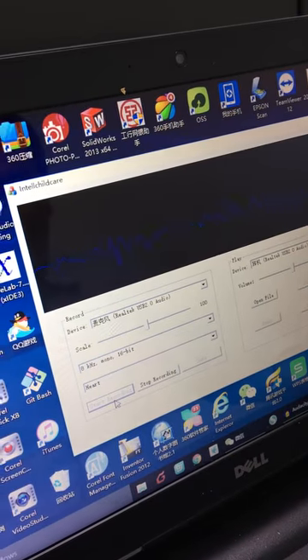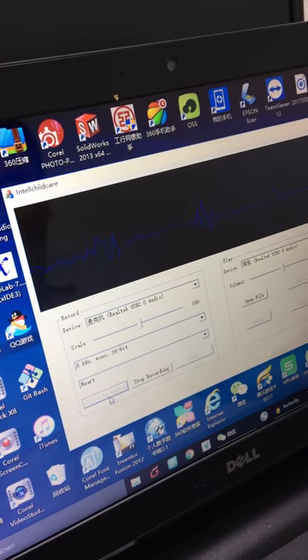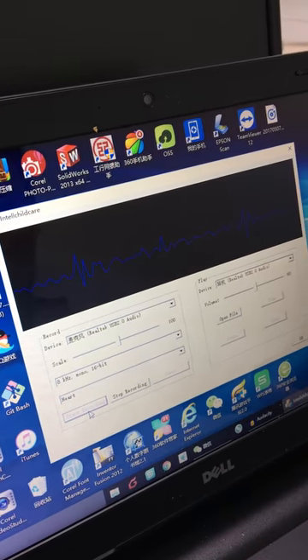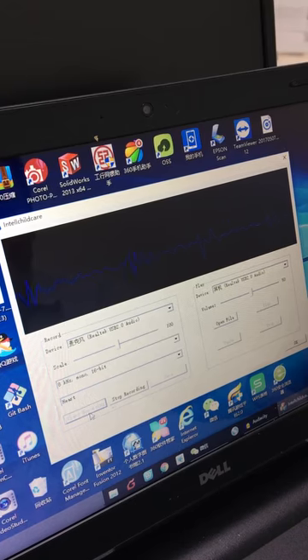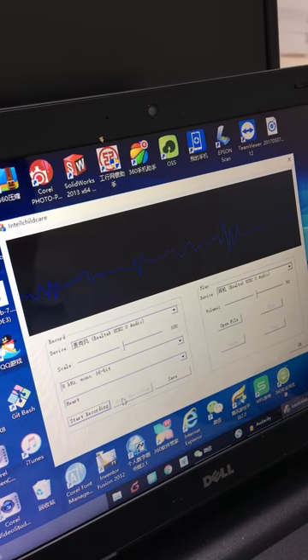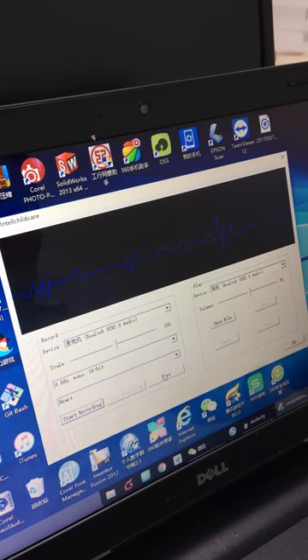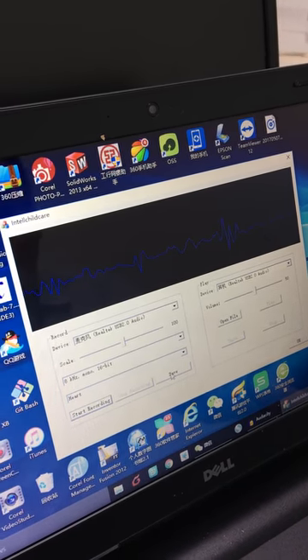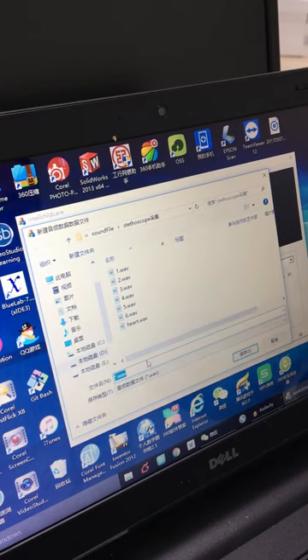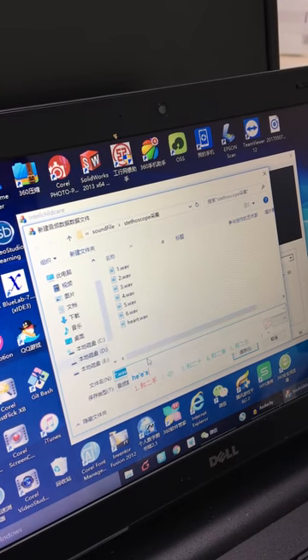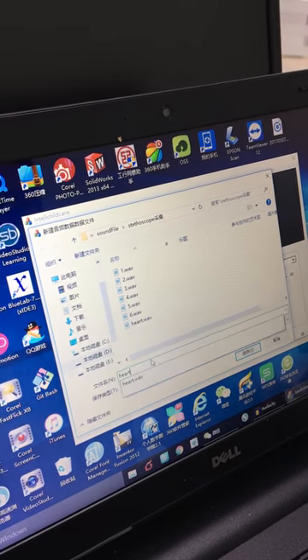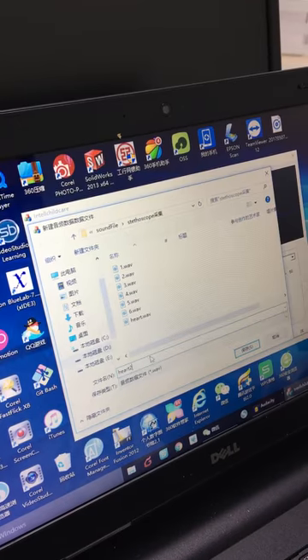Start recording. Then, we stop recording. We press save. We can save the file. Heart tool.